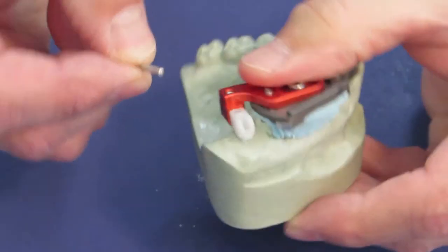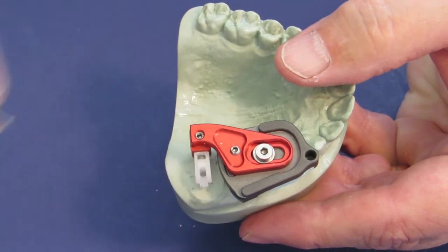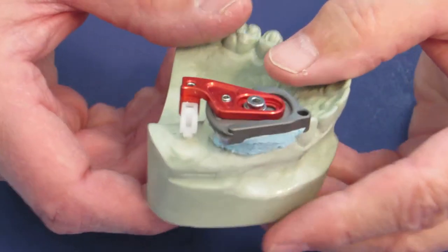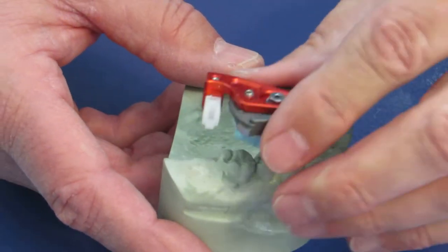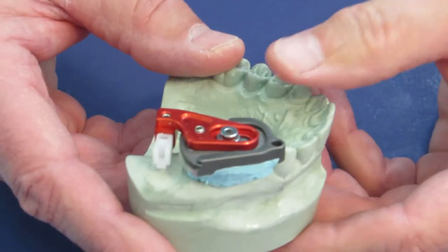When I am satisfied that I have the right drill path, I take the pin out and I am ready to take this off the model and go right to the patient's mouth at this point.